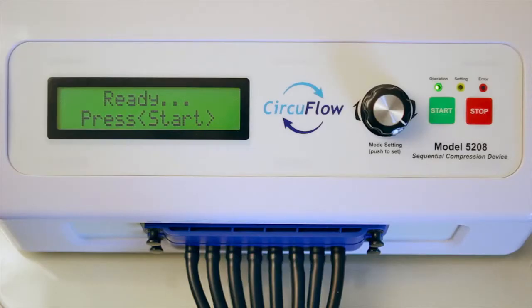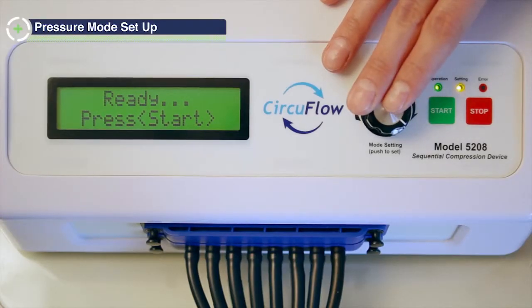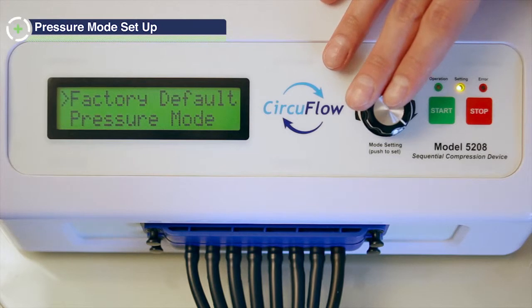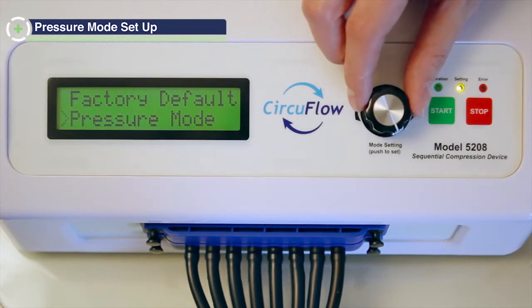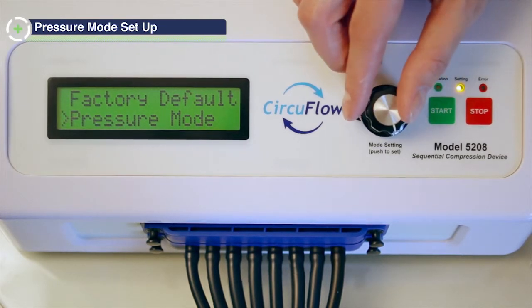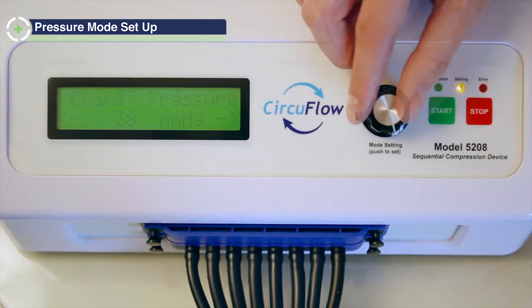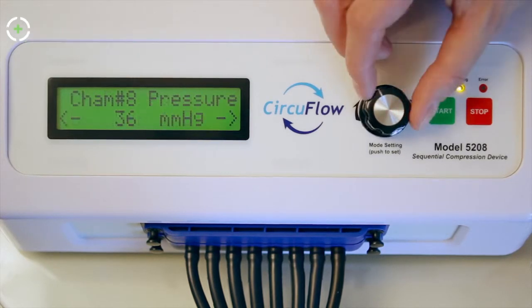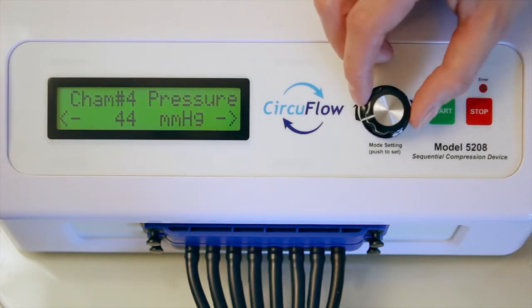To customize the pressure settings, access pressure mode by pushing the shuttle knob. Turn the knob to the right to select and push to access pressure set. The pressure can be changed in all eight chambers individually.